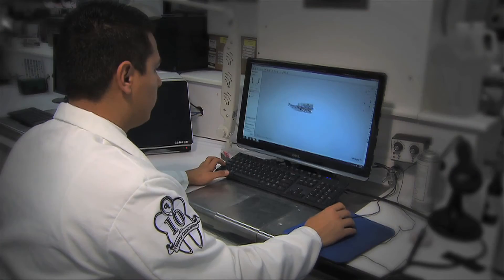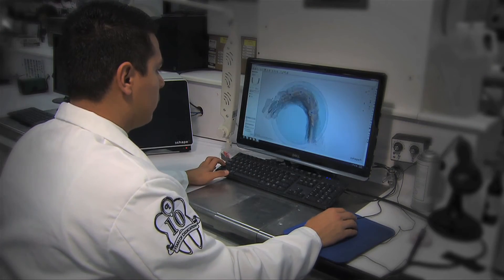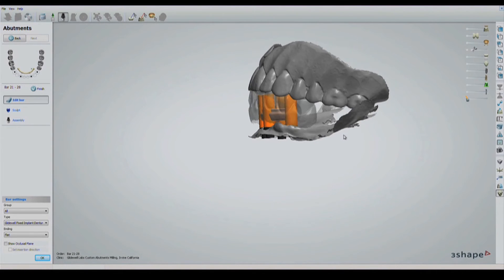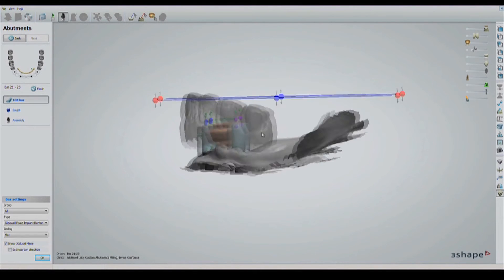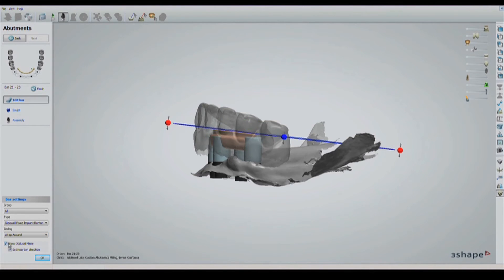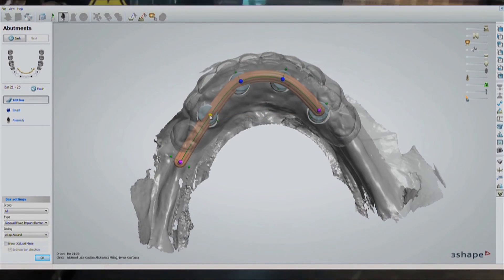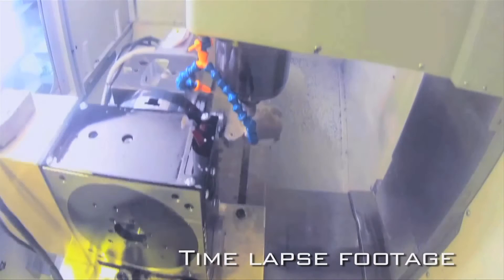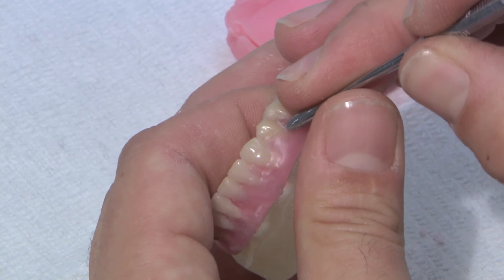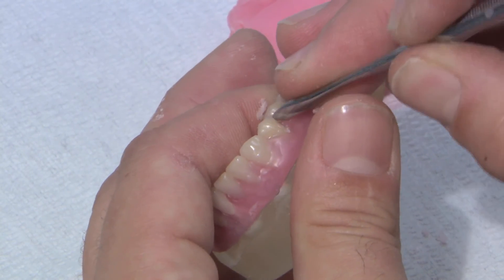The laboratory technicians used the scan data to design the final prosthesis. The denture and the milled titanium bar were designed together in dental CAD using the scans of the provisional prosthesis and opposing denture as design guides. The intersecting volume of the milled bar was subtracted from the bottom of the denture to complete the design. A 3D model of the final denture was printed, the titanium bar was milled, and the two were mated together to create a denture mold.